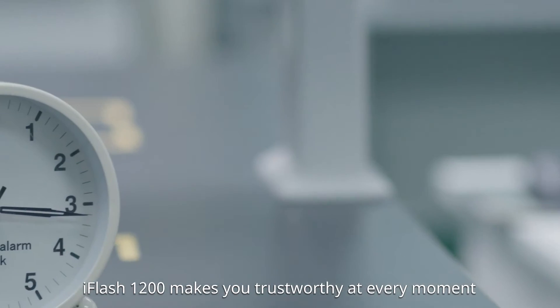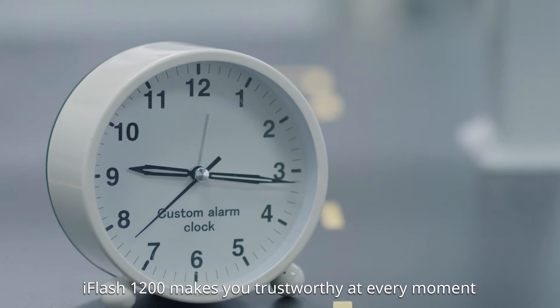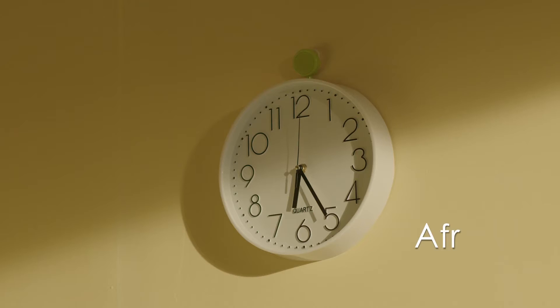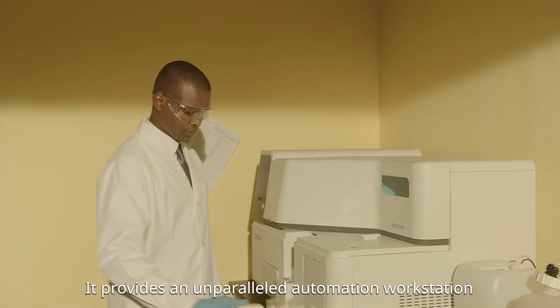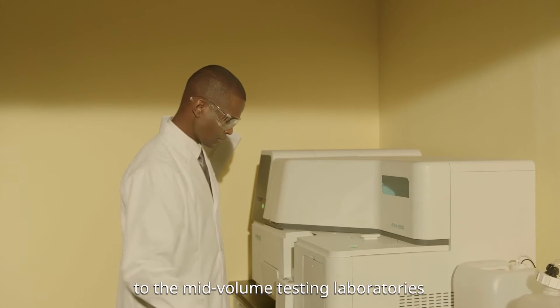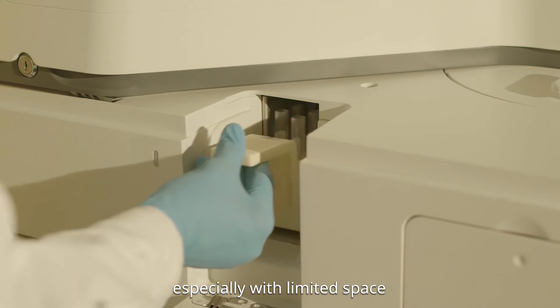iFlash 1200 makes you trustworthy at every moment. It provides an unparalleled automation workstation to mid-volume testing laboratories, especially with limited space.